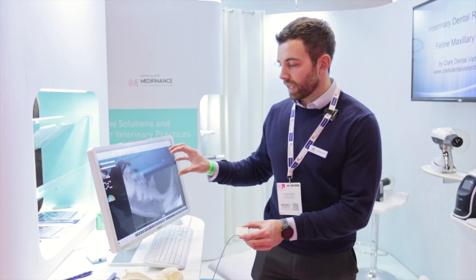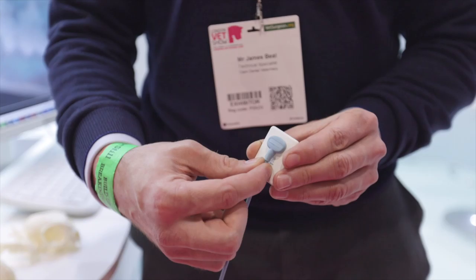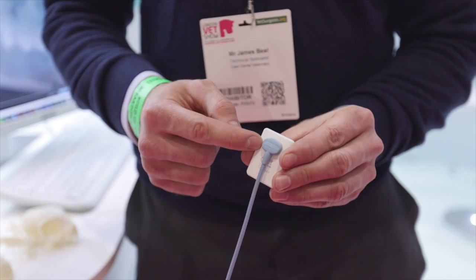Not only the image quality, but the fact it has a replaceable cable on the back. All of the other sensors on the market have the sensor cable soldered to the back, so if the cable is destroyed you have to replace the whole sensor. With this design, you can simply take the lip off the sensor with two screws and replace the sensor cable, which extends the life of the sensor considerably.